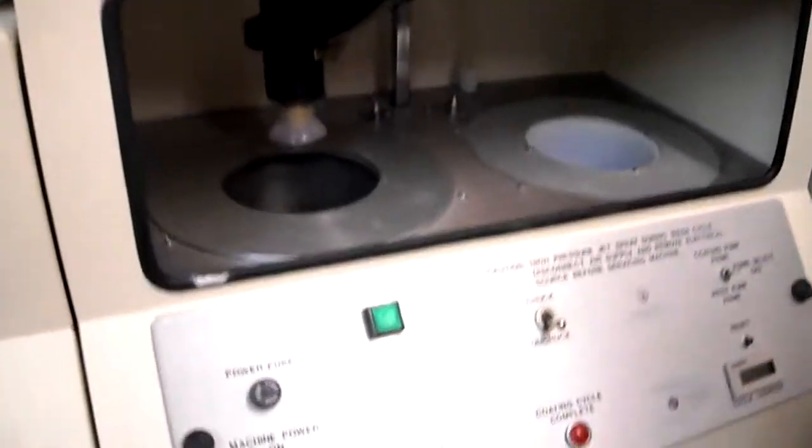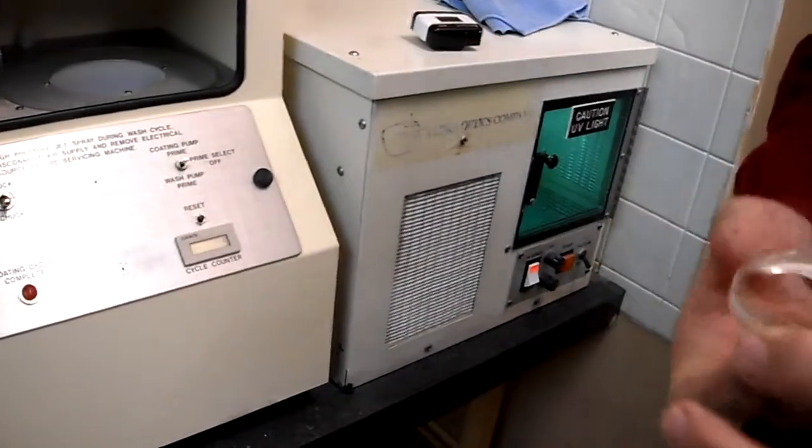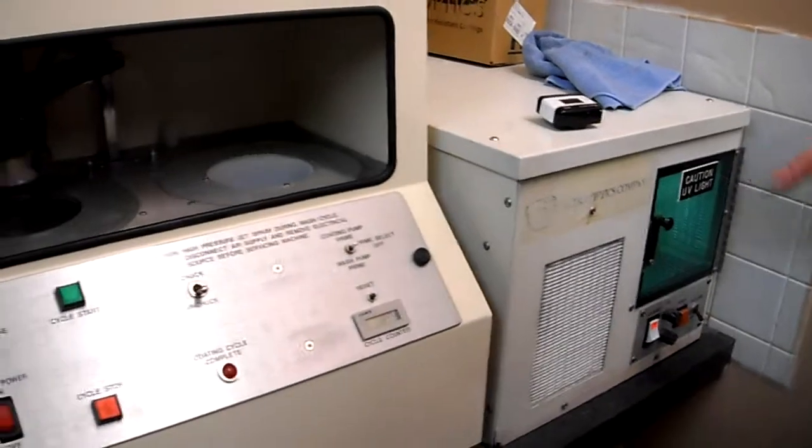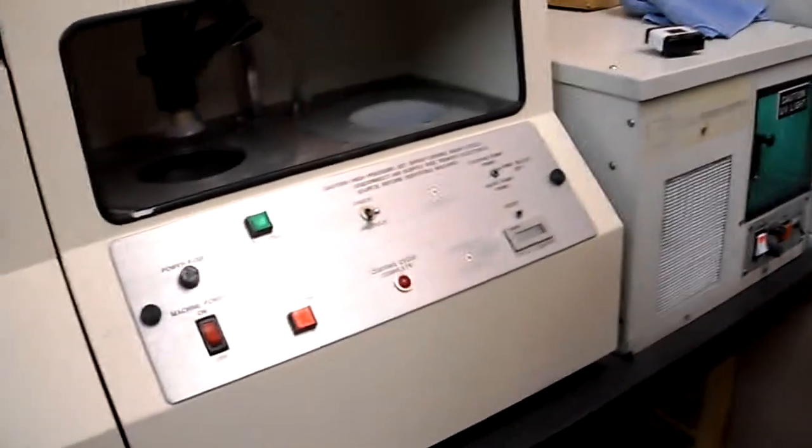I have to be careful not to touch the chemistry. I have to be careful not to stare at the UV light because it's very bad for you. The UV light probably looks green in the video but it looks white to me.